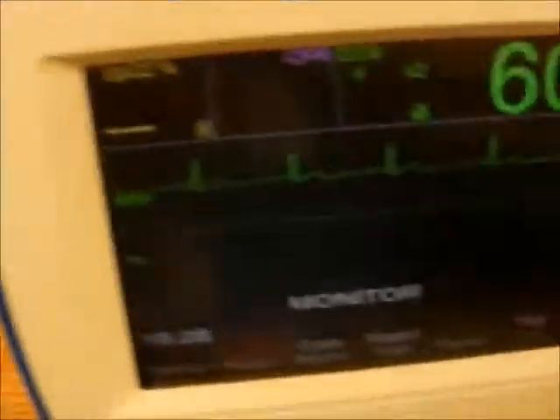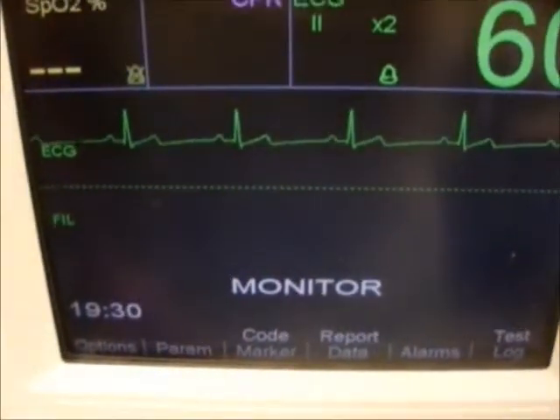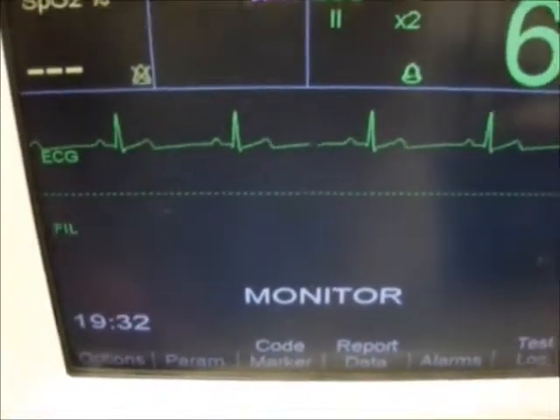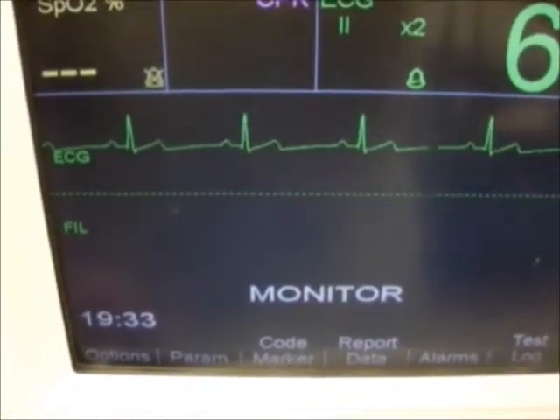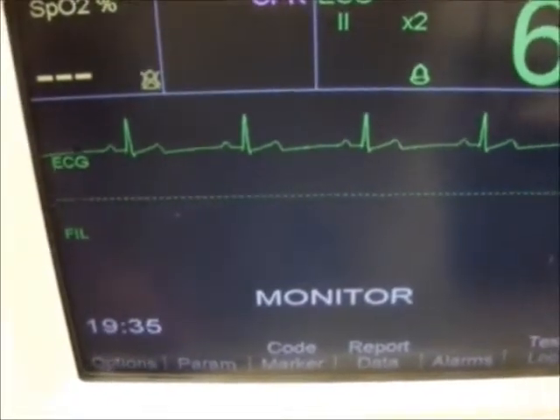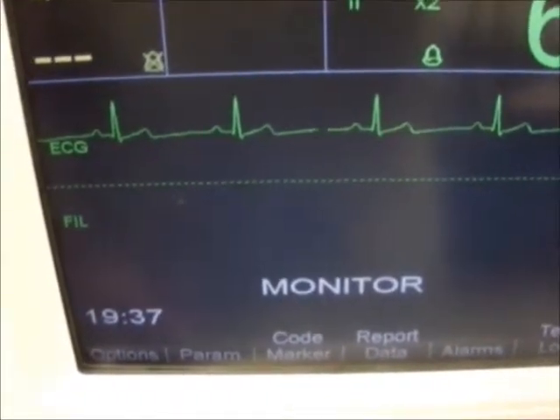Alarm delay. Here we will measure the alarm delay for the defibrillator, which has the current ECG set to 60 beats per minute.